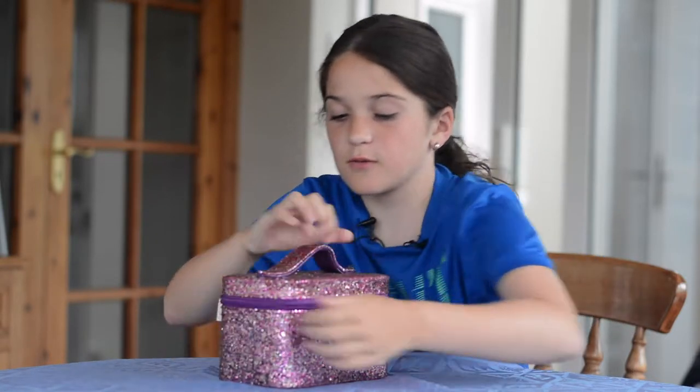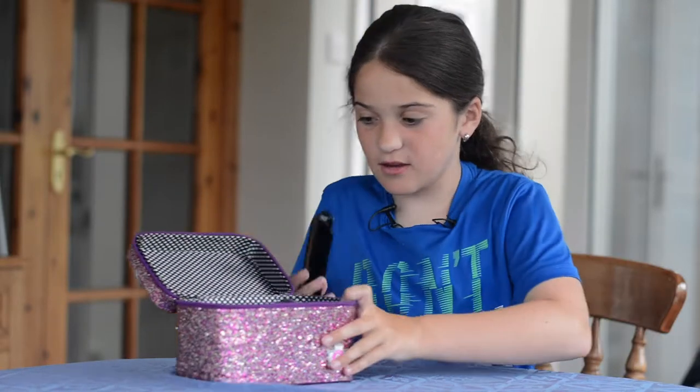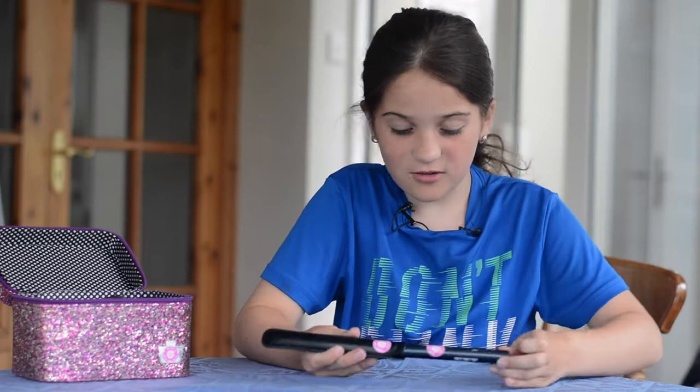You might be asking, what's so important in this box? Well, it's called an FM system. It's very expensive — it's about $3,000.